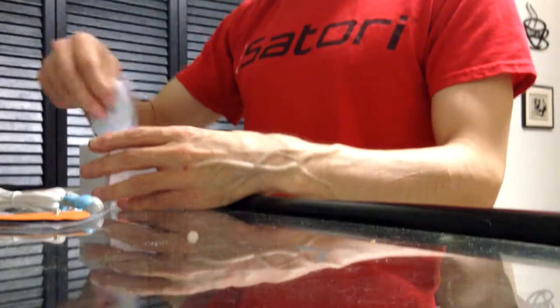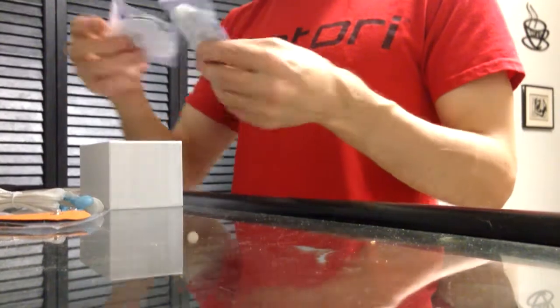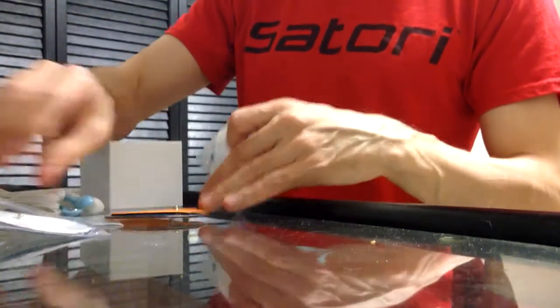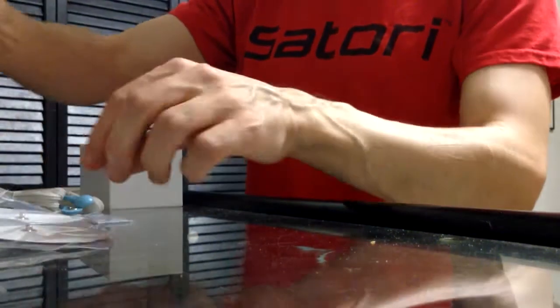Okay, here they are — here's more pads! More pads here, at least I think they're pads. It's really hard to tell because these look different — some are orange and some are white. I don't know what that means at the moment.